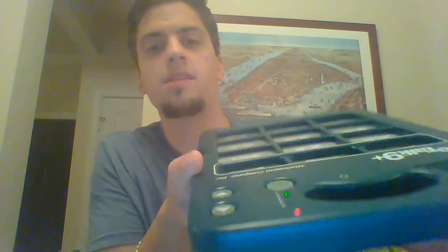Thank you. Bye. So this device can hold up to 5 different levels. That means that there's a total of 48 different utterances or words or phrases that the device can store at one given time. 3 of those being available on all 5 templates at all times. Now, what we want to do is, if we want to re-record or change some of the phrases, what we're going to do is we're going to take a look at the back. There's a record button right here. I'm going to press that until this red light lights up.